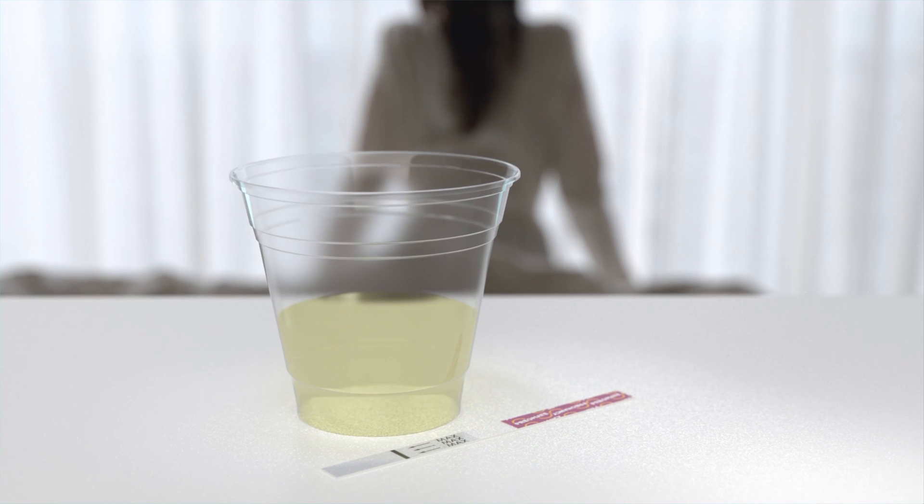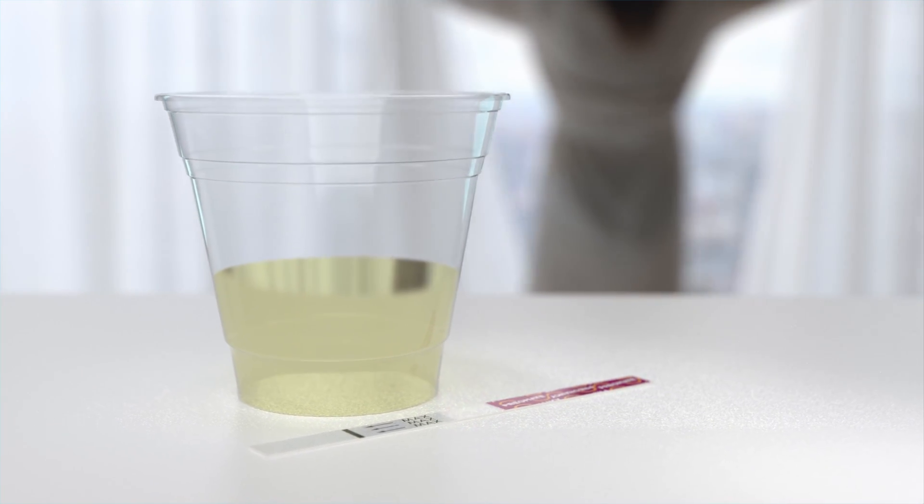For the most accurate reading, we recommend using the first morning urine when it is more concentrated.